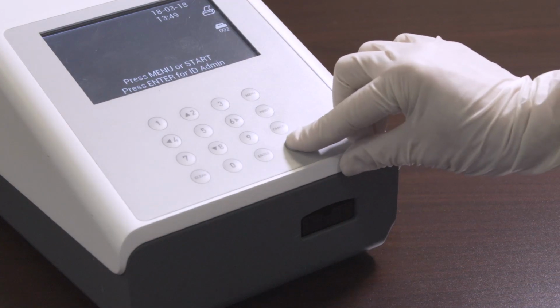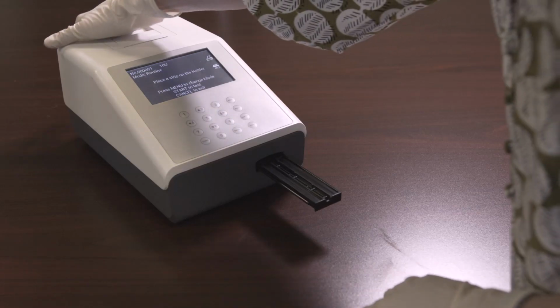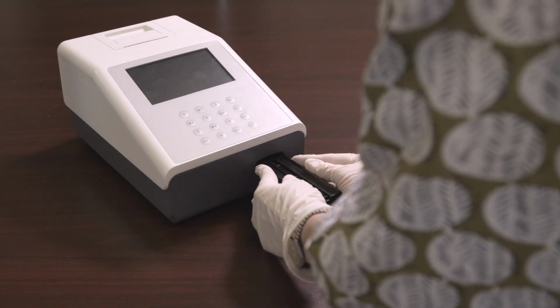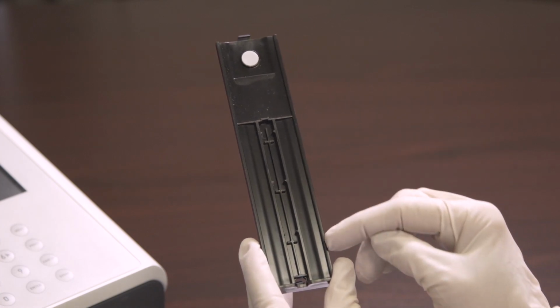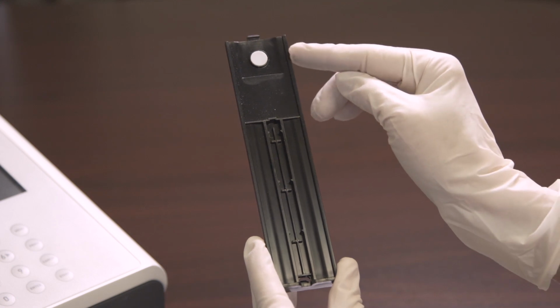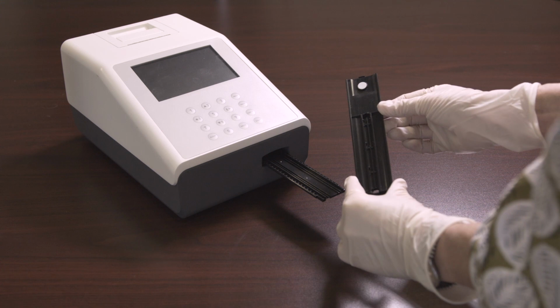For daily cleaning, remove the strip holder by pressing Start to fully extend the strip holder mount. Turn off the power switch after the strip holder mount is fully extended. Then remove the strip holder from its mount by pulling out the sides gently. Clean the strip holder using a lint-free non-absorbent cotton swab ball with distilled water. Be careful and avoid touching the white calibration circle. Then dry with a clean dry cotton ball.